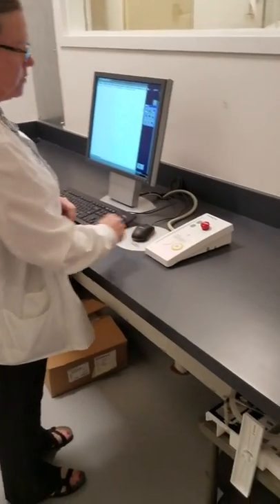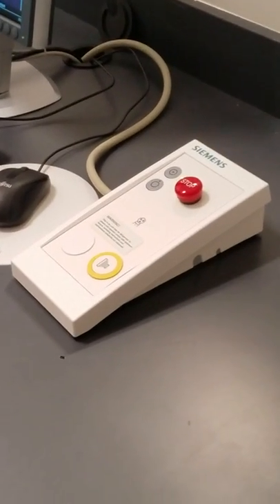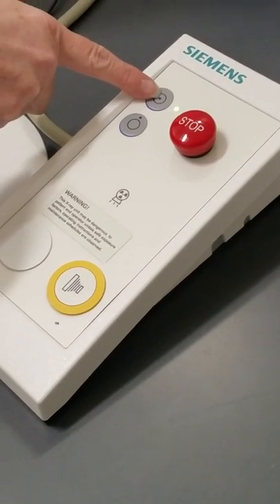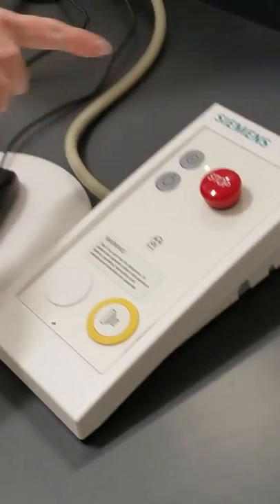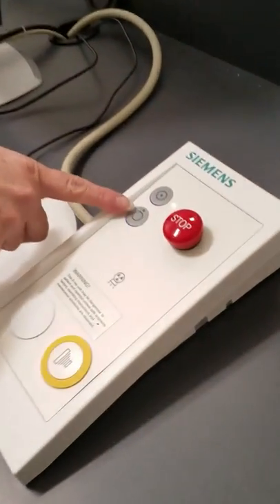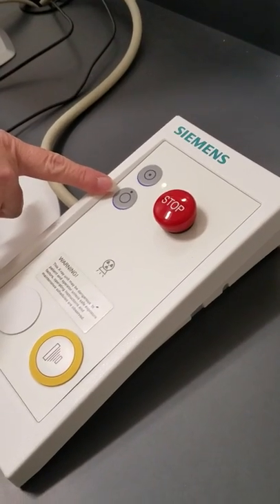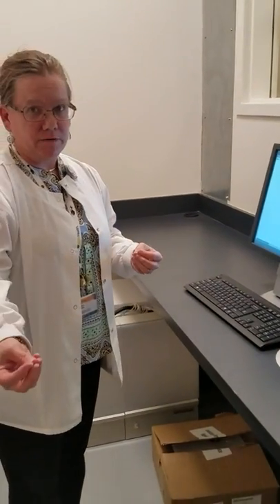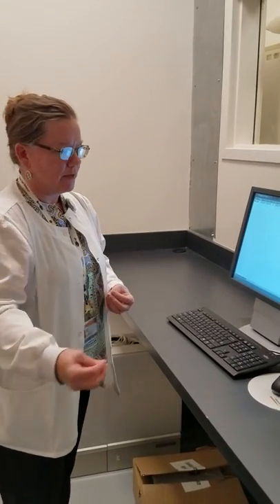If the room is not turned on when you come in, you use the button with the dot in the middle of the circle — that's your on button. Think of it as coming into the room, coming into the circle. If you're leaving the room and need to turn it off, use the button with the dot outside the circle — think of it as leaving the room, turning it off, coming outside the circle.